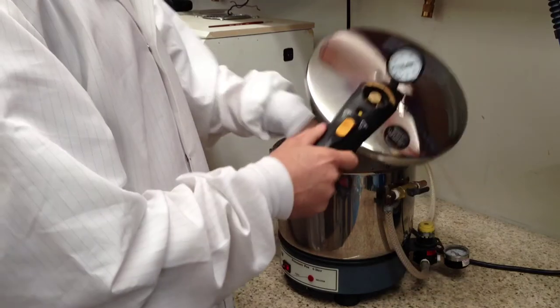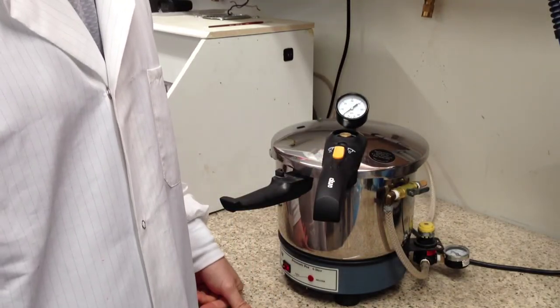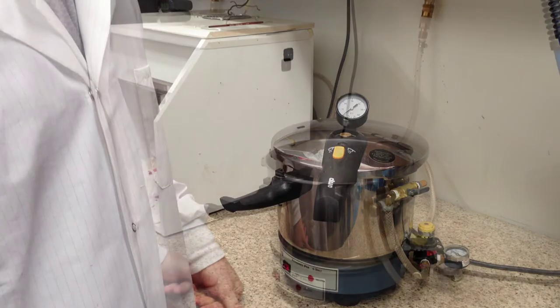You will cure your retainer for about five to ten minutes at that temperature, 120 degrees.